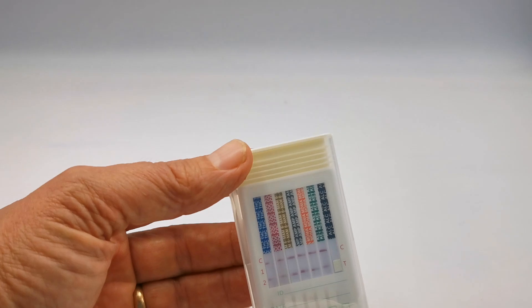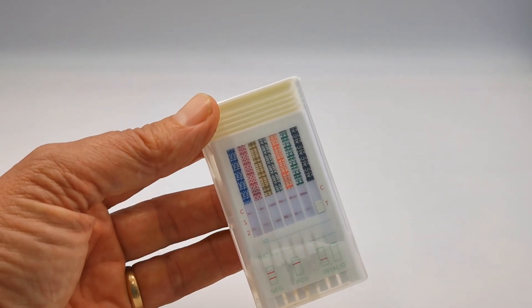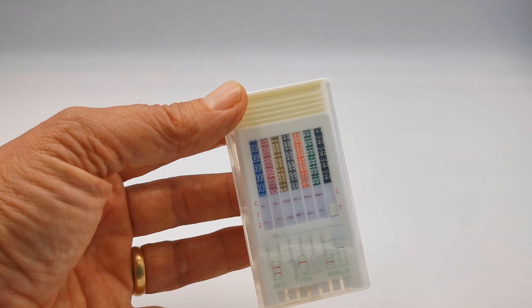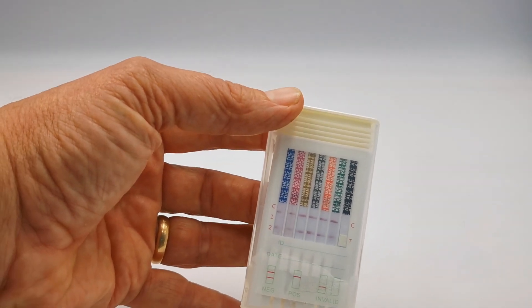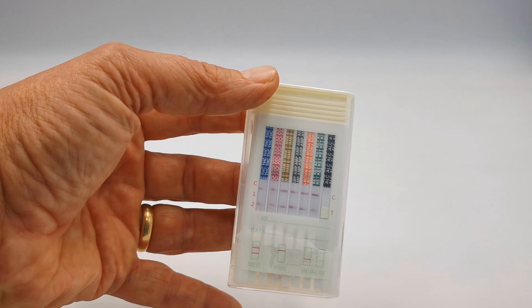We do sell a range of laboratory confirmation screens for workplace screenings should you wish to move to a laboratory chain of custody confirmation for any non-negative results.